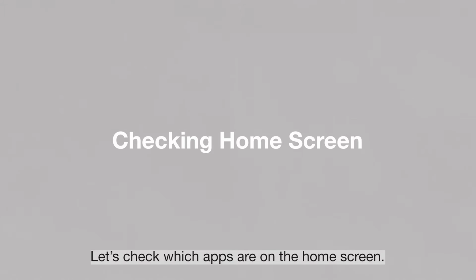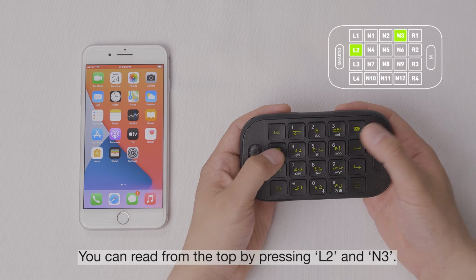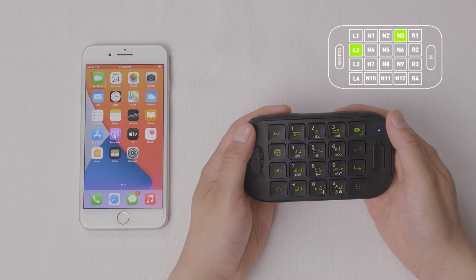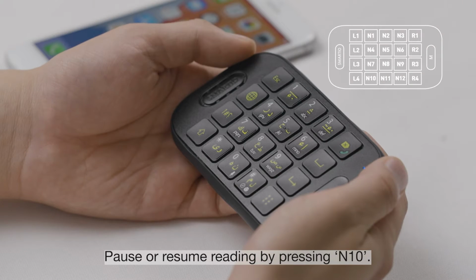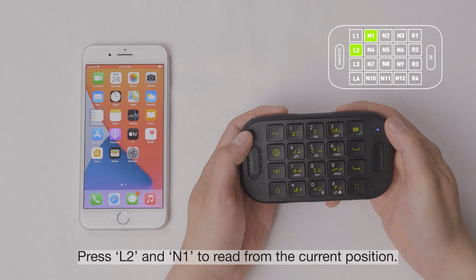Let's check which apps are on the home screen. You can read from the top by pressing L2 and N3. Pause or resume reading by pressing N10. Press L2 and N1 to read from the current position.